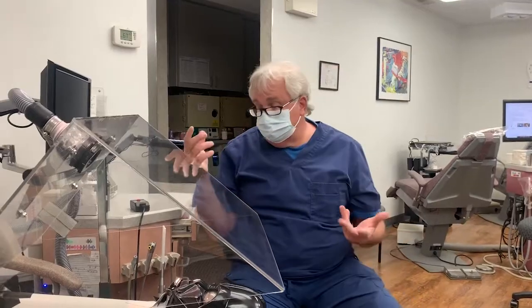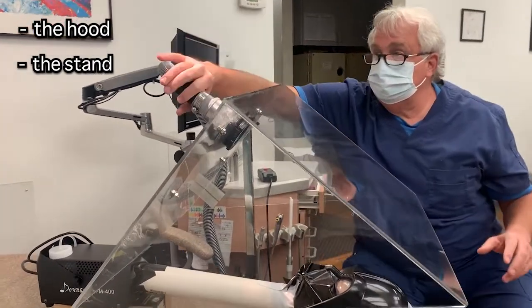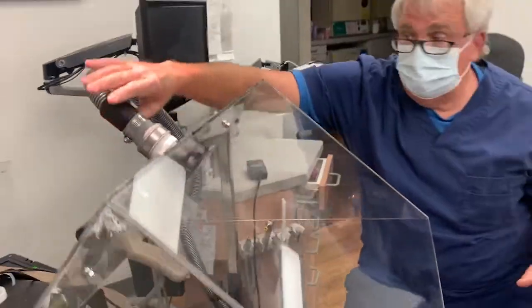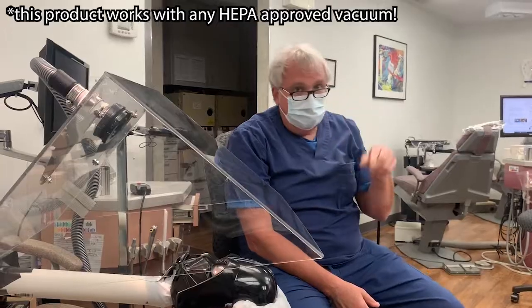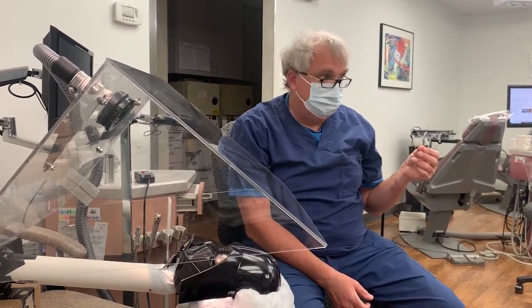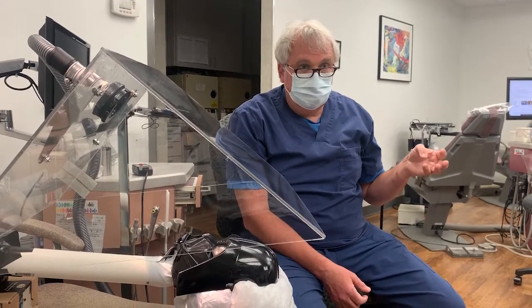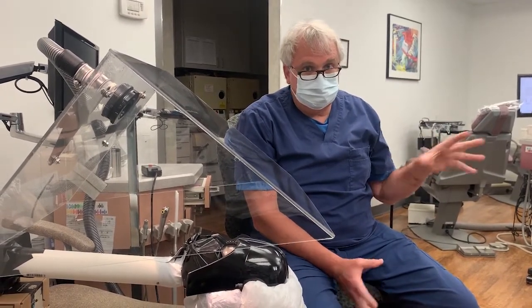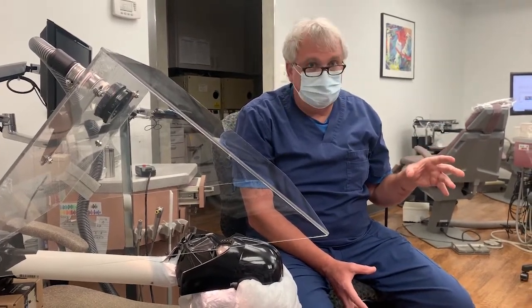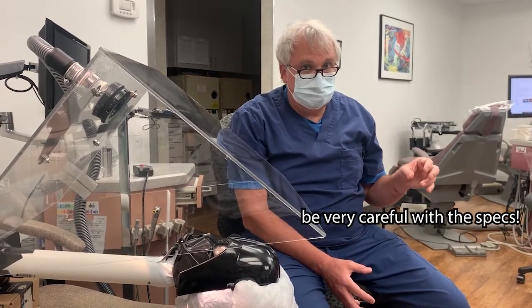So when you purchase this device, you will receive the hood, the stands, everything that you see, and it stops right here. It does not include the suction — you can use whatever suction you want. My product works with any HEPA-approved vacuum. It's been tested with one that has 130 CFMs and it'll pull 96 inches of water. Those are two different measurements that they grade vacuums by. A lot of dental vacuums will not meet those requirements, so if you're going to use a different vacuum, you have to be very careful about the specs.